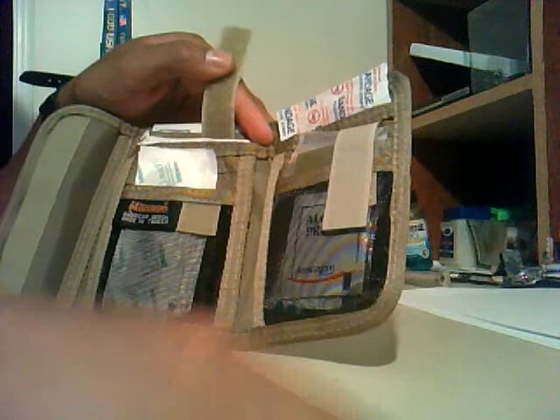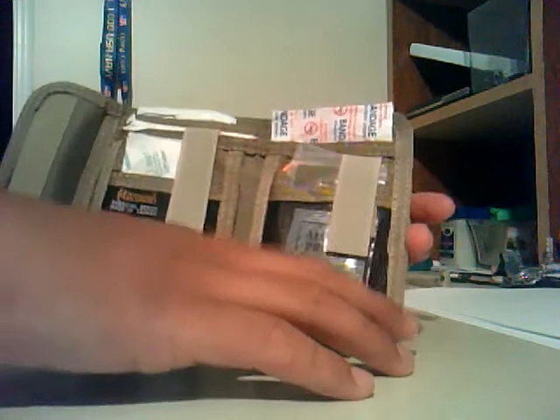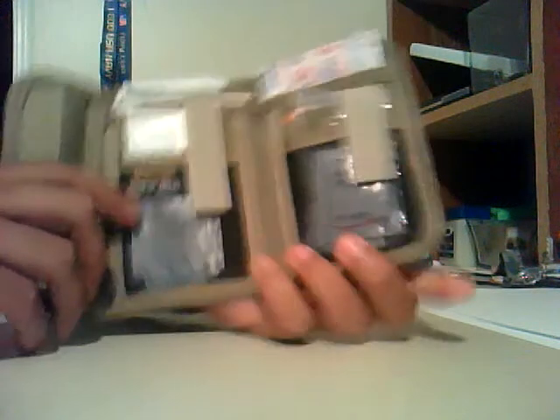One, obviously, I cut myself. Cut myself. And also, at school, all the time, everyone's like, anybody have a band-aid? Obviously, now they know to come to me. Everybody comes to me for band-aids now, especially when I'm in class. They're always like, I'm glad I'm in class with you, John.